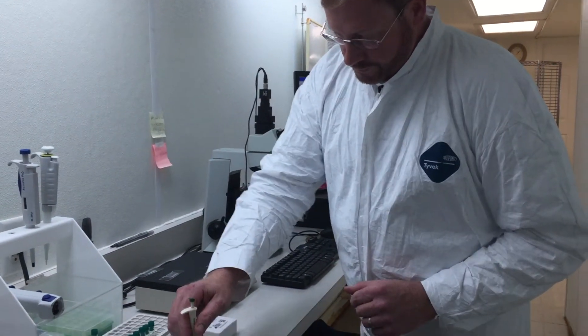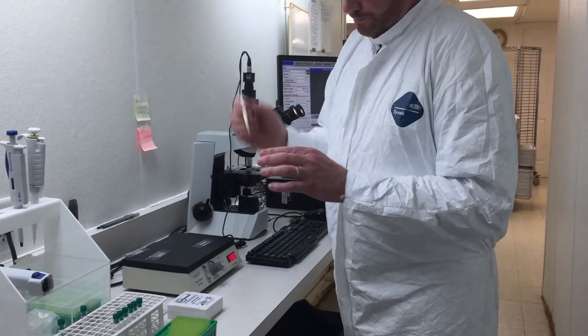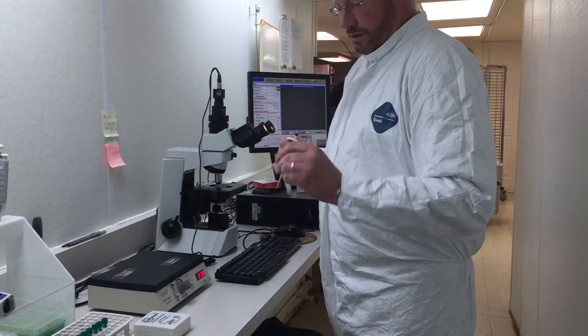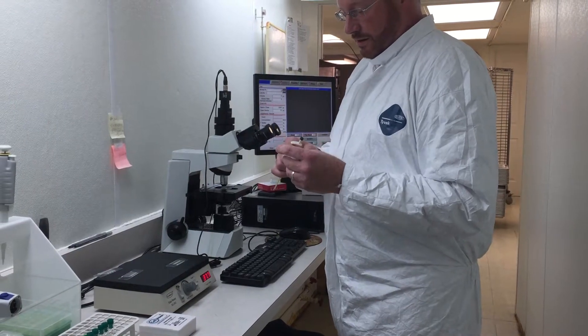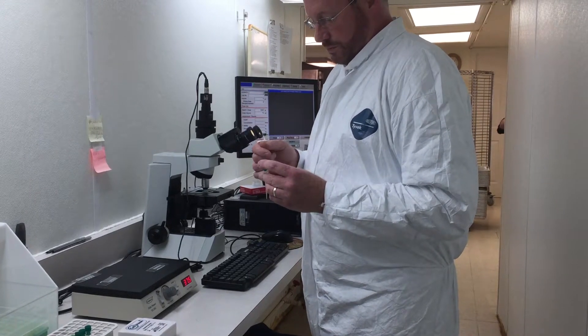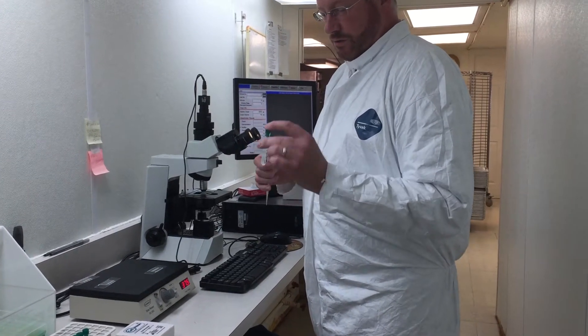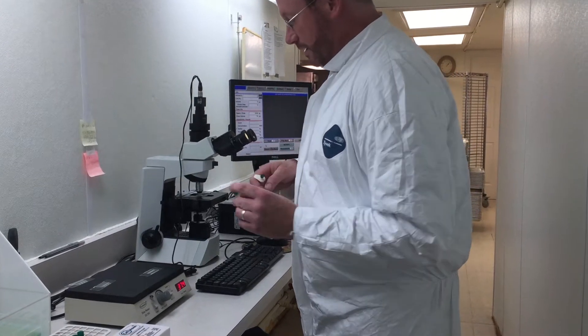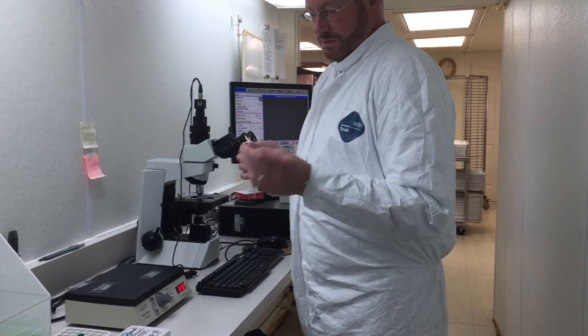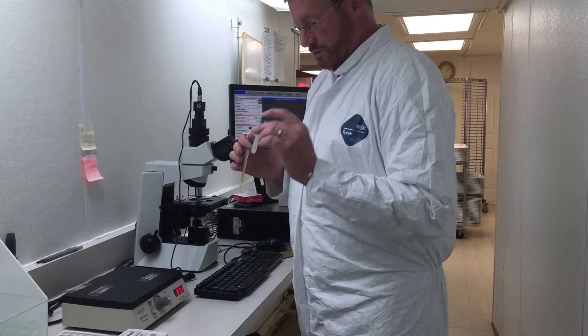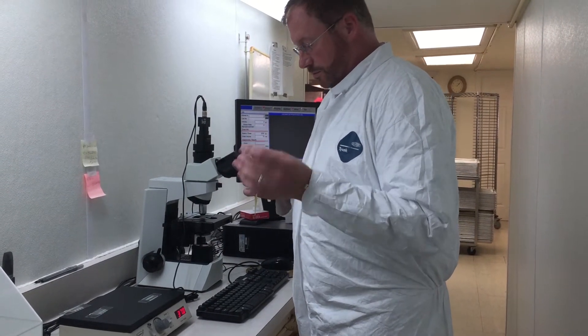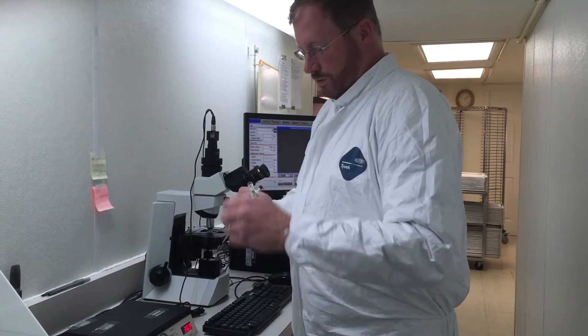We start with the pipette with a tip to sample. If you're using a bottle or tube from your semen supplier, make sure you stir it very, very well immediately before drawing the sample. If you don't get a really good mixed sample, you're not going to get an accurate count. Good stirring is very important. Sperm cells settle very quickly, so if you stir it and let it sit for a minute, you need to stir it again.